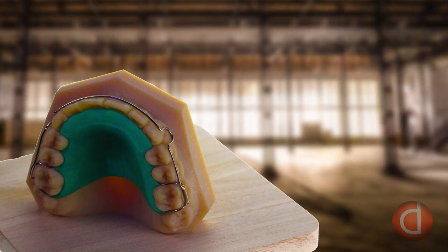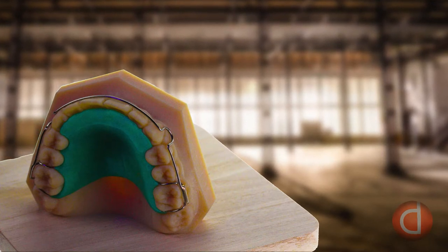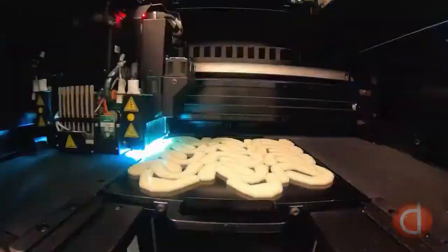After your braces have been removed, after spending thousands on treatment and months in braces, your retainer will help keep your investment straight. New technology allows the orthodontist to scan a patient's teeth and palate, and these digital 3D images are then sent to a lab for printing.